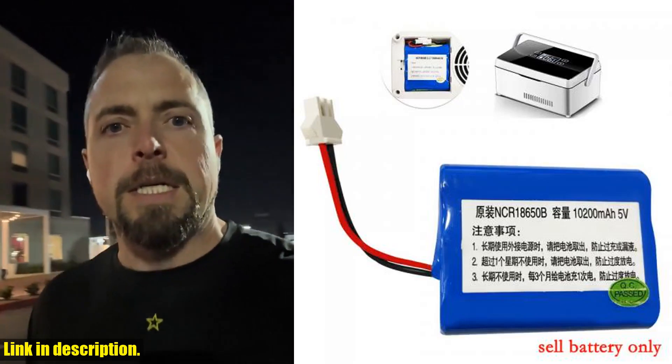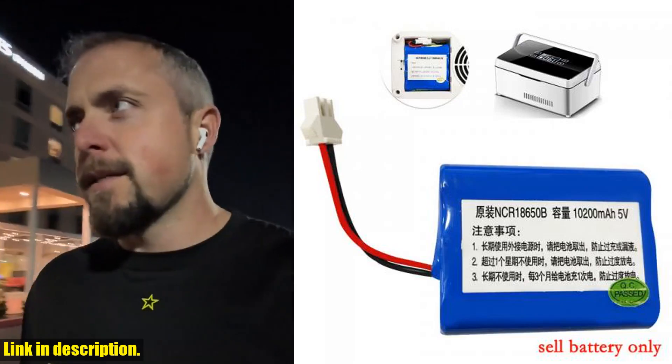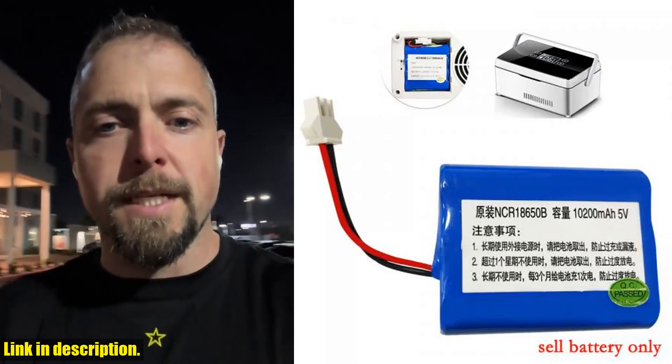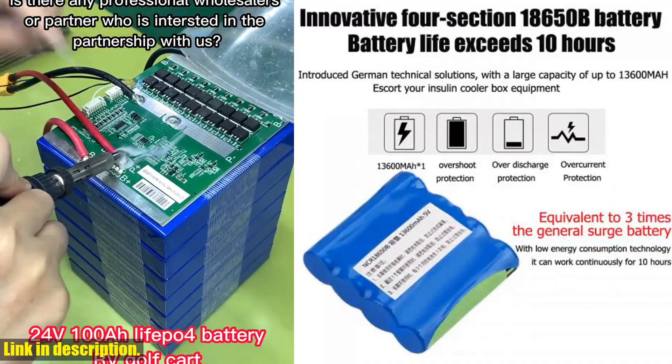You can choose the package that suits your needs, whether it's a package with 3 batteries or 4 batteries, or even a combination of both to ensure you never run out of power. If you need to keep your insulin refrigerated on the go — whether it's for travel, work, or just daily life — this lithium battery is the solution you've been looking for.